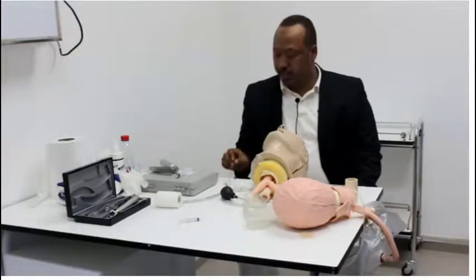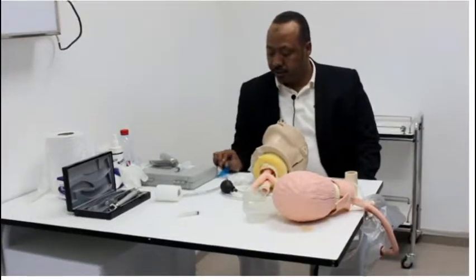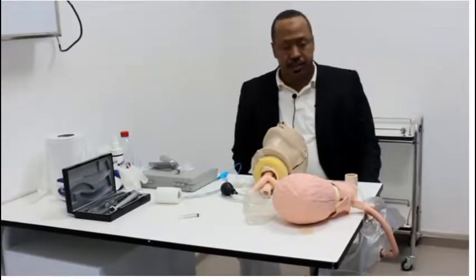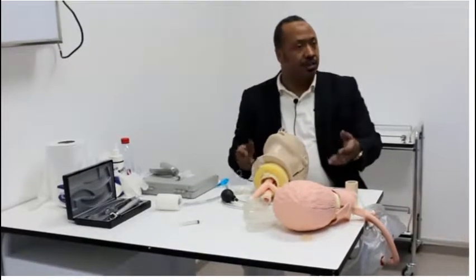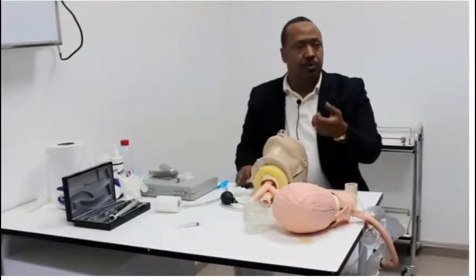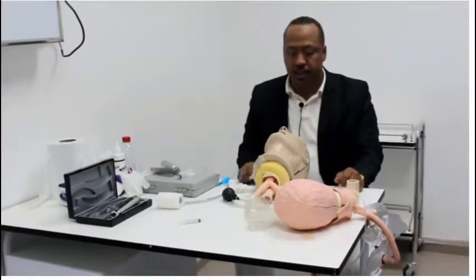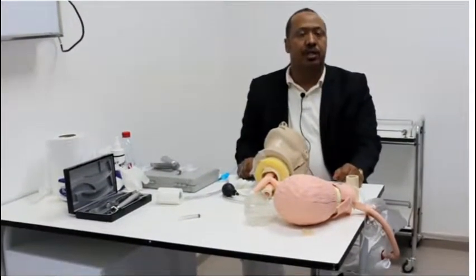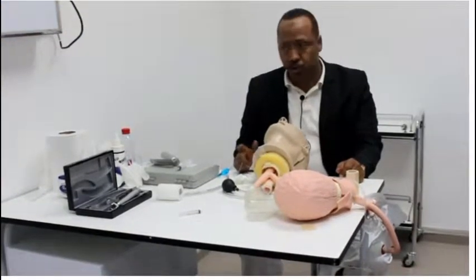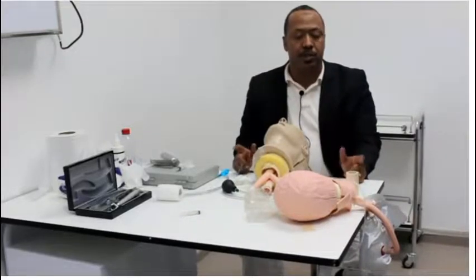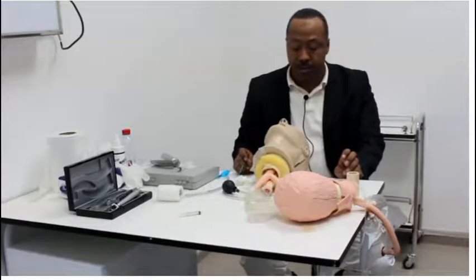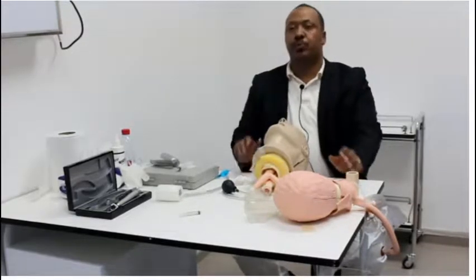Respiratory distress or respiratory obstruction, cardiac arrest for ventilation for the patient. If you have a problem in the tracheal intubation, you need to enter the tracheal tube. If you don't have spinal injury, you can enter the tube. And the common use is for anesthesia.